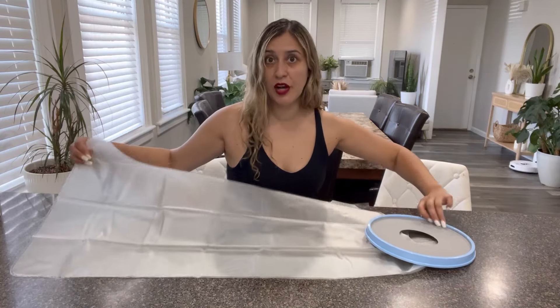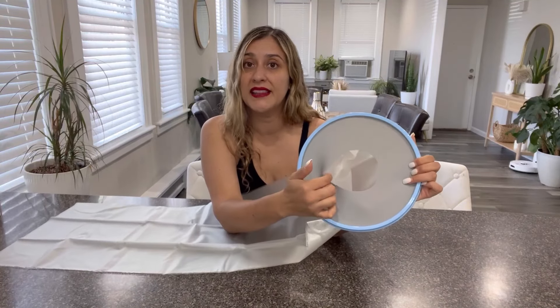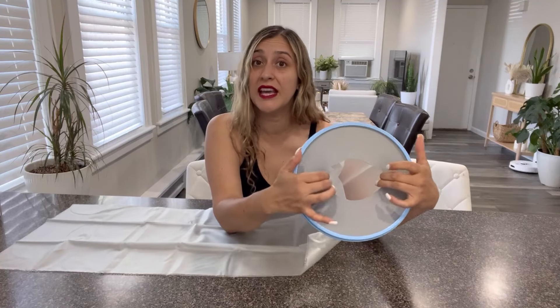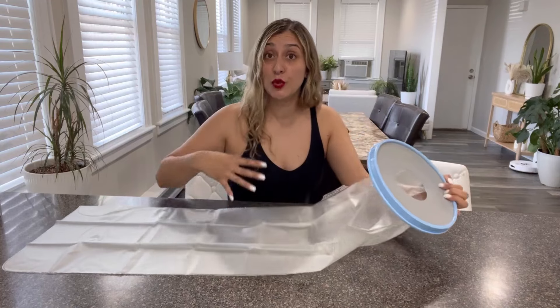It's super easy to put on. As you can see, it comes with a ring right here made in this rubbery elastic type of material, also skin-friendly, that you can expand to make it adjust to your thigh.